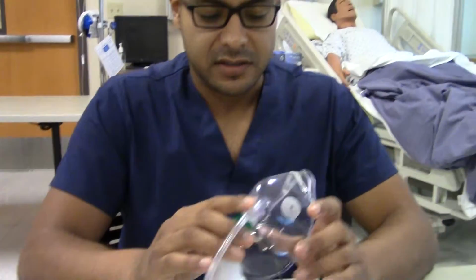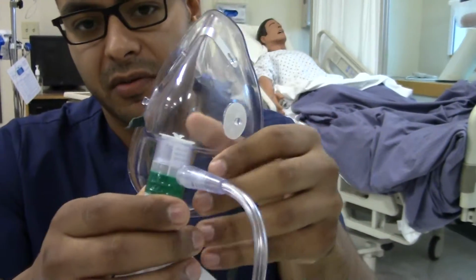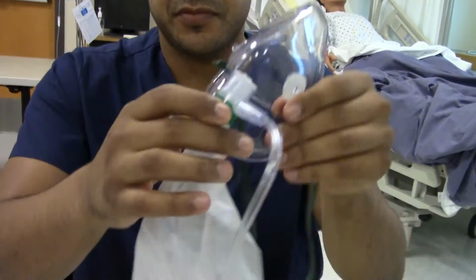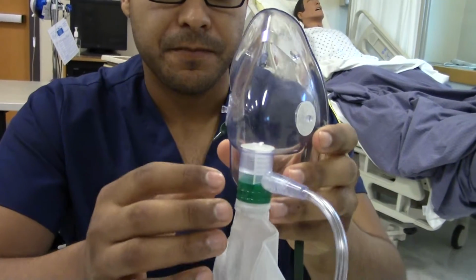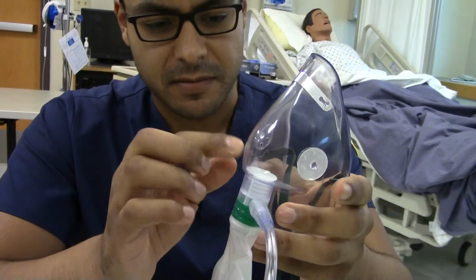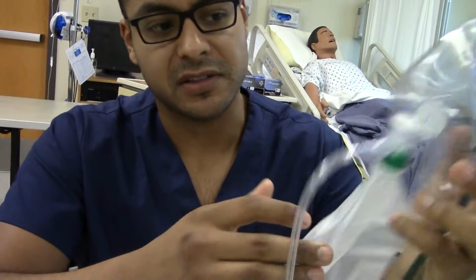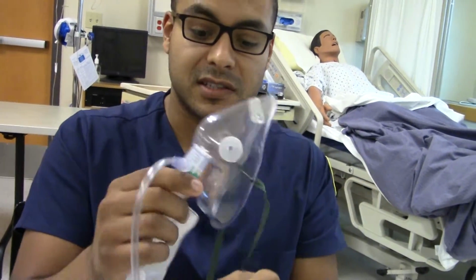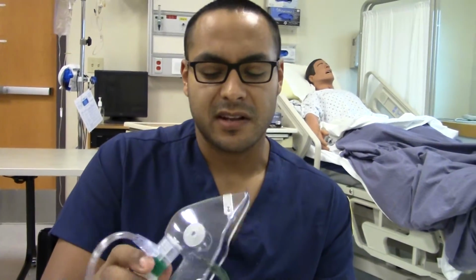And nowadays, they're kind of getting rid of this, the partial, right? It has one leaf, but now they kind of consider this the non-rebreather also. They're not using it in hospitals a lot. Usually it has two leaves, but nowadays, who really cares? They took one off for a reason, because it allows more air to go in. But yeah, this replaced the non-rebreather. So this is the partial, not really considered partial anymore, but this is the non-rebreather oxygen mask. FiO2 of 60 to 80 and a flow above 10 as well.